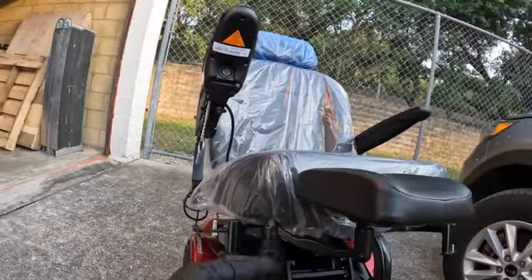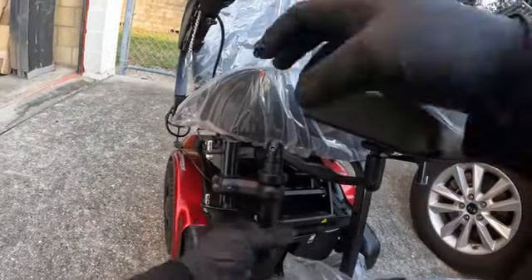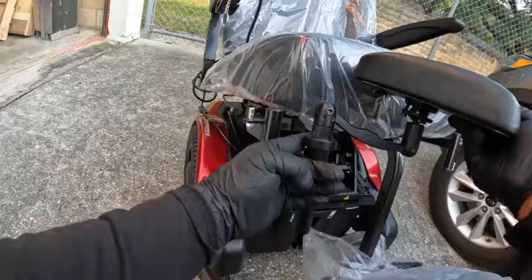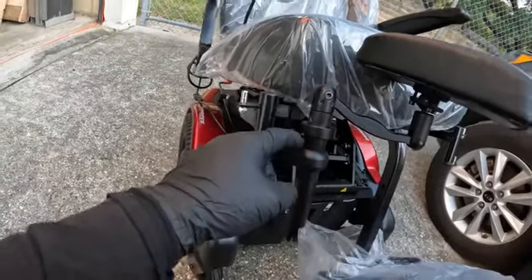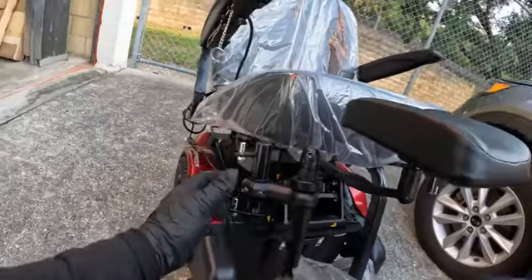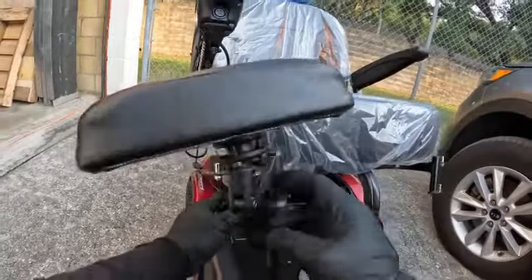To bring this higher, you would need to address this little bracket. There's a small hole right in there — if you twist this a little bit, there's going to be a silver pin right underneath. This pin is what holds this from spinning. Once it goes into that hole it's going to stop spinning. But if you need to bring the whole thing up, you're going to loosen this up — this one has one flange bolt right here.